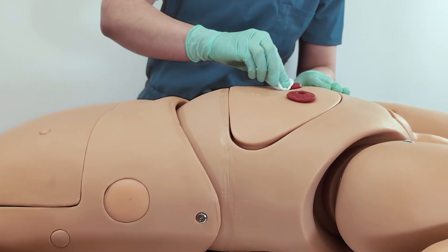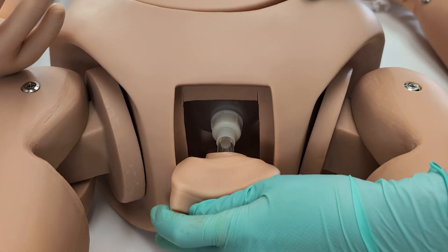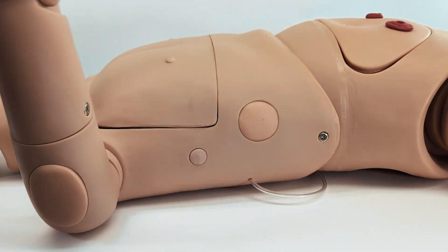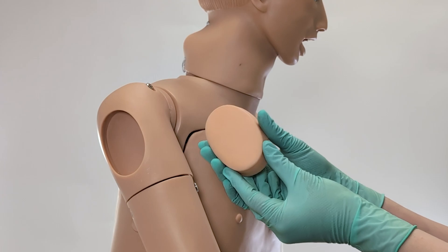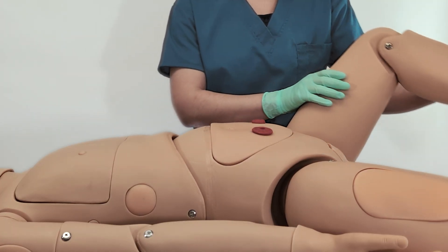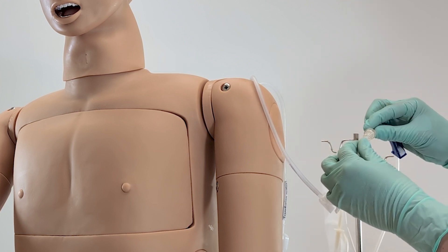From basic dressing and hygiene, to blood transfusion, catheterization, and intubation. This model's phlebotomy features include multiple injectable pads for venipuncture and injection, with articulating joints for realistic access to common injection points and functional inlets for demonstrating transfusion procedures.